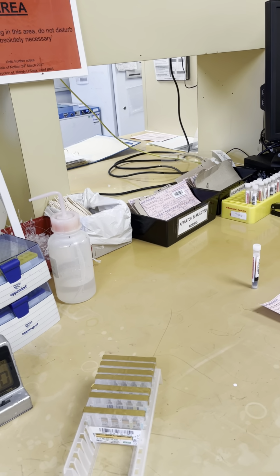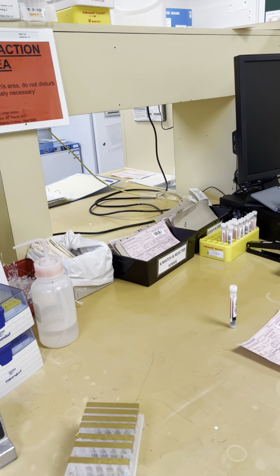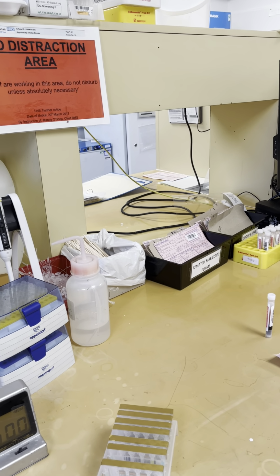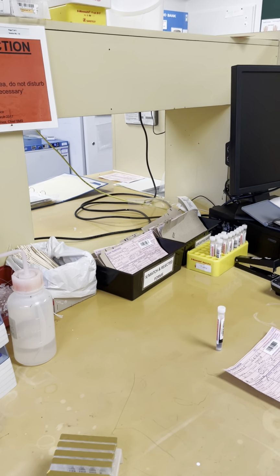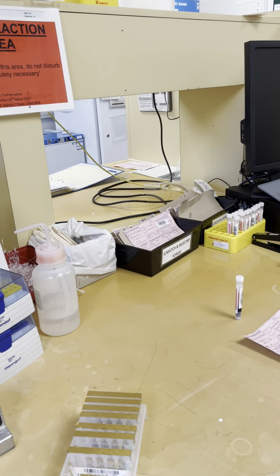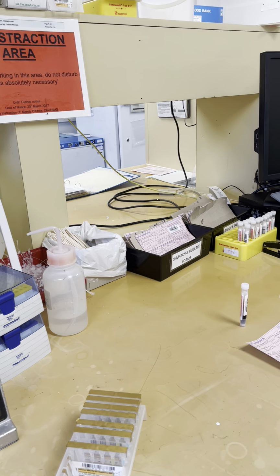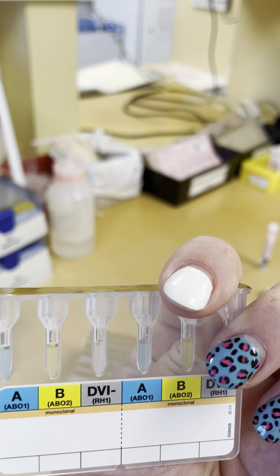So if this is activated, we can use these cards to quickly confirm the patient's blood group, so we can issue group specific blood. If we have a historic group, which is then confirmed on a new sample, or 2 historic samples, and we have a valid sample. So we do use these cards because they give the results of the blood group quicker. And as I've just said, there's obviously no reverse group on these cards. It is literally just the forward group.